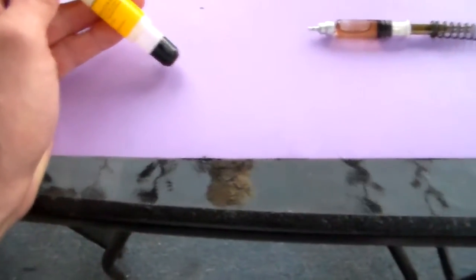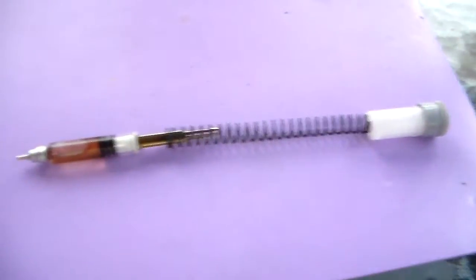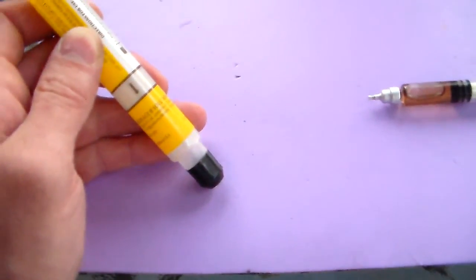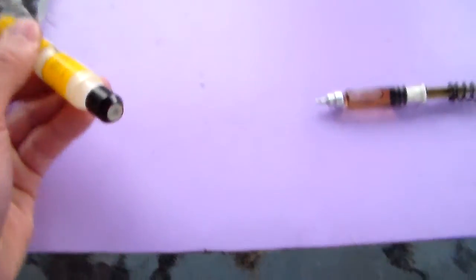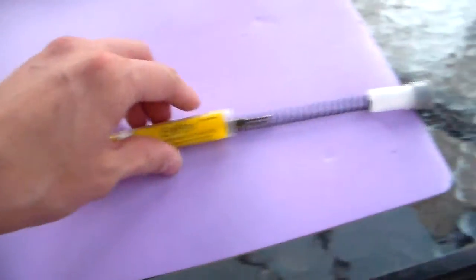This is just how it works. Spring pressure holds it in. Giant spring. You push in and needle comes out. It's very simple. As simple as that.